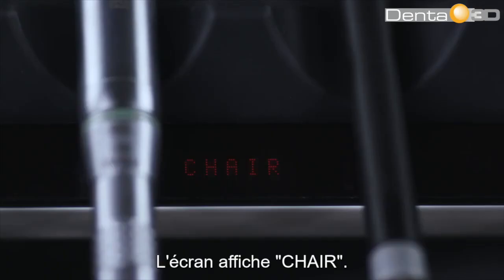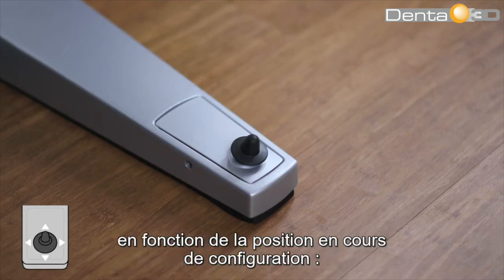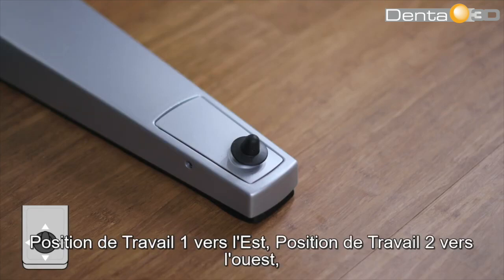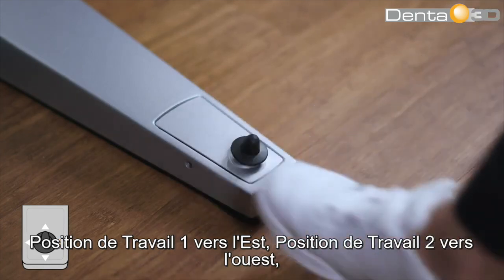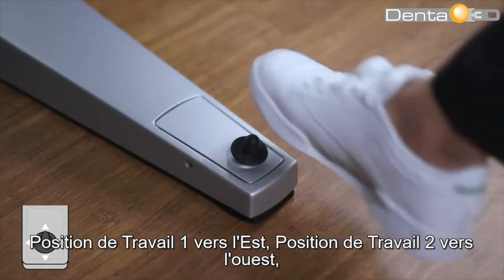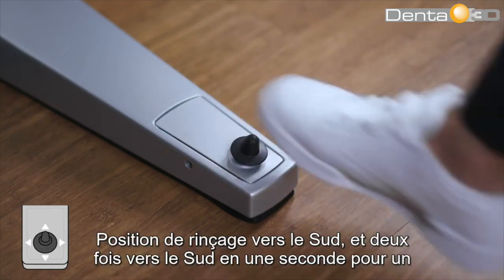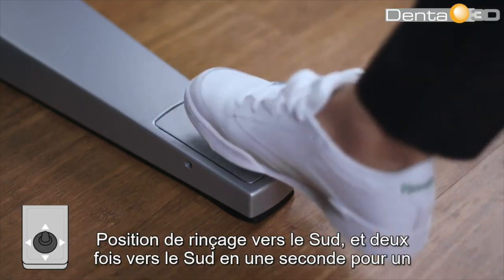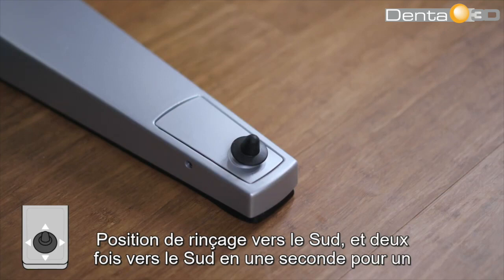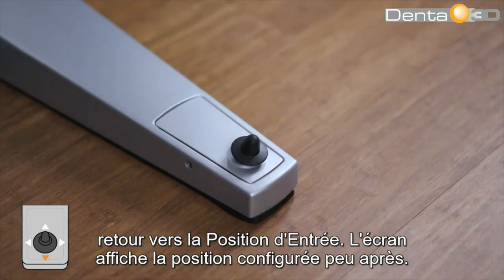The display will show 'chair.' Activate the chair-based joystick according to the position being configured: working position 1 towards the east, working position 2 towards the west, rinse position towards the south, or towards the south twice within 1 second for the entry position.